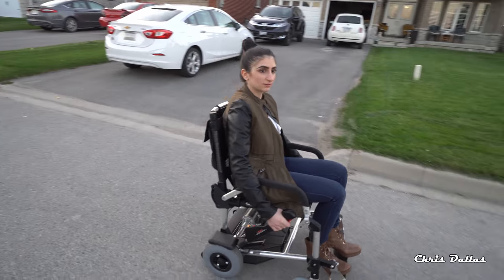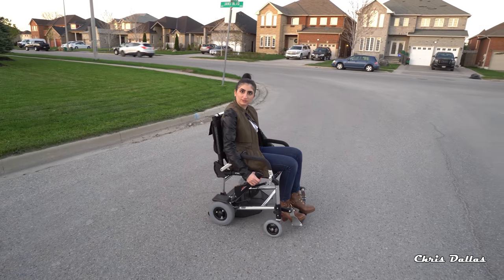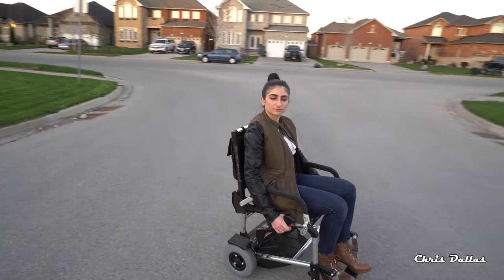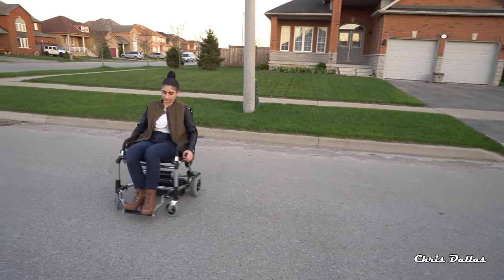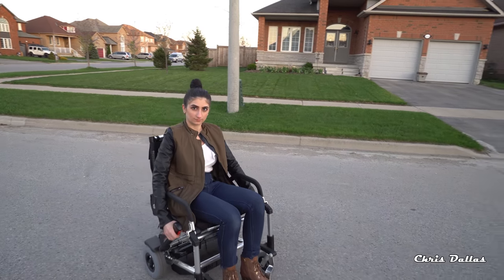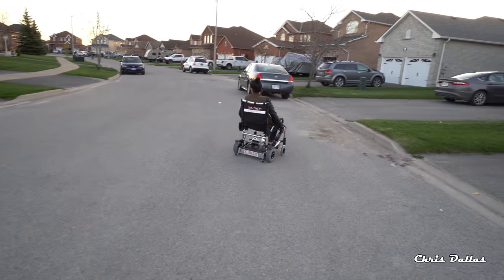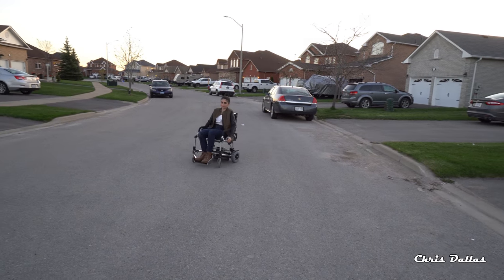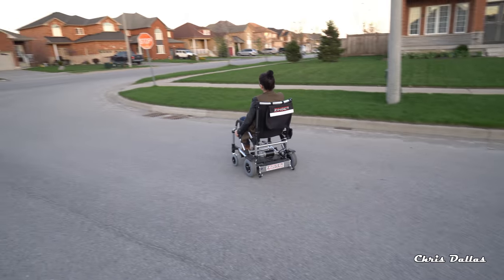Would you prefer this over a wheelchair? Why would someone even want to use a wheelchair after using this? Well, depending if they have movement with their hands — some people can't move their hands. If they have an injury with one of their hands, then they need the joystick, which could be placed on either side of the chair. But if you're fully capable of using your hands, then this is a perfect chair over a wheelchair.